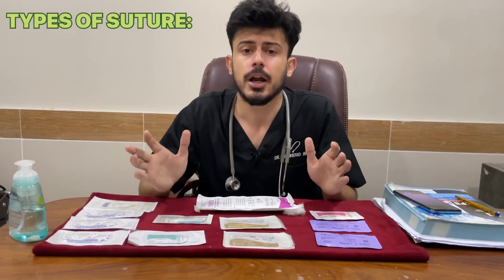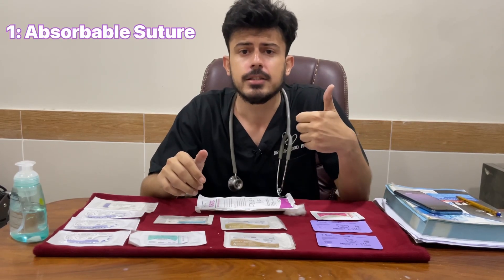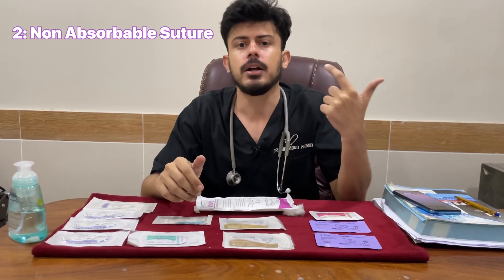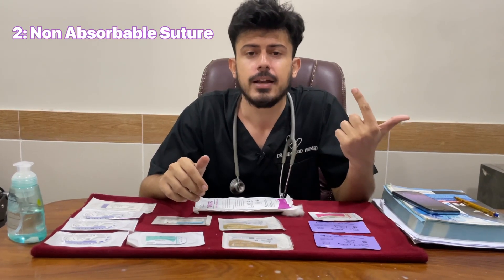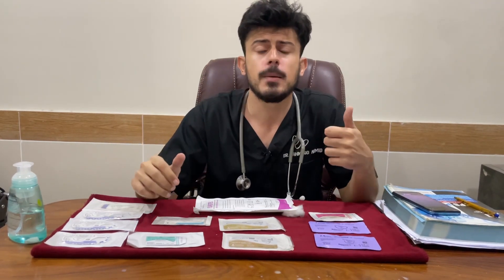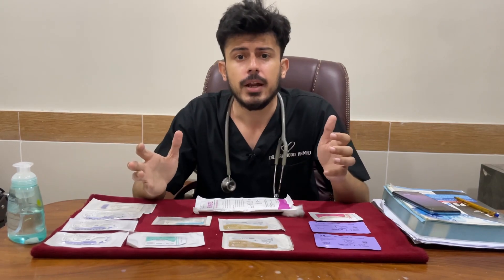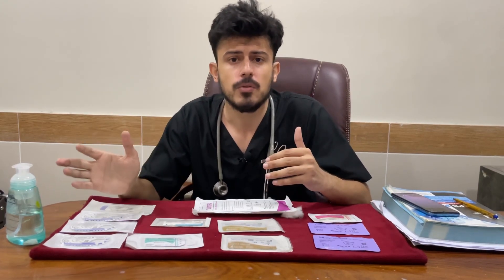Now let's discuss the types of suture. There are two types: the first is absorbable suture and the second is non-absorbable suture. Absorbable suture is a type where it is naturally absorbed in the body, and non-absorbable suture is a type where it is not metabolized by the body as it is man-made material.